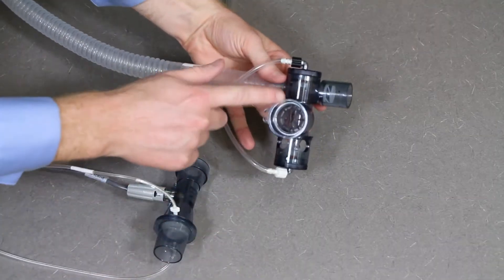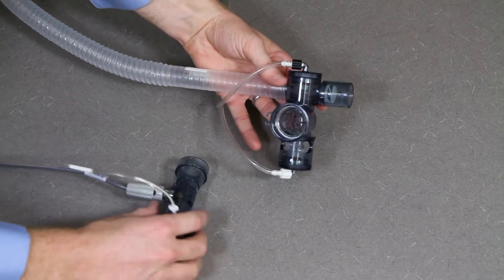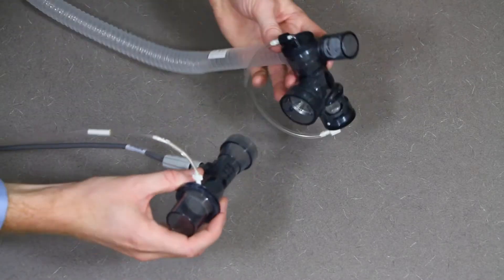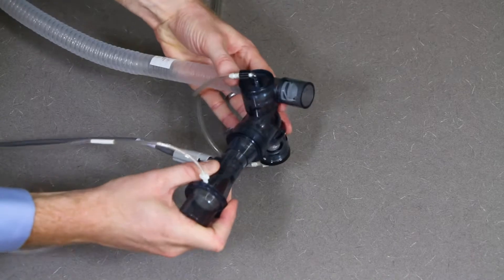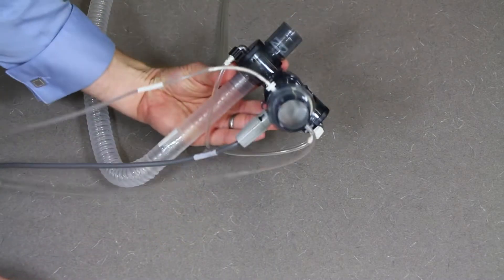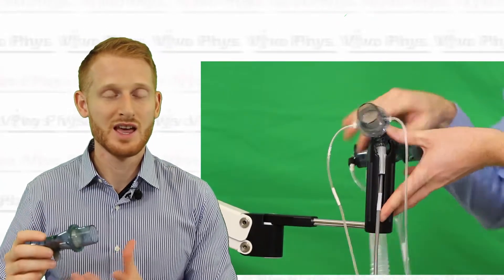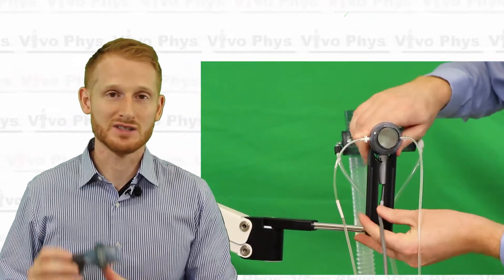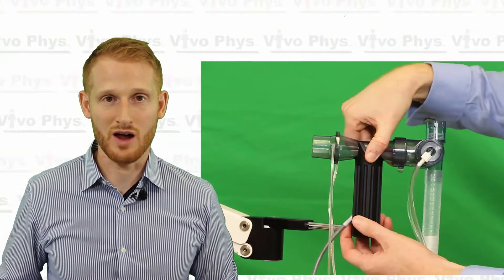Then it's just a matter of plugging this into the rest of the airway assembly, which is just pushing it in firmly until it goes in all the way. Once you have that, until the participant gets there, I suggest just putting it into the black holder that's attached to the machine. Then when the person gets there, you can take it out and attach it to their mouthpiece.